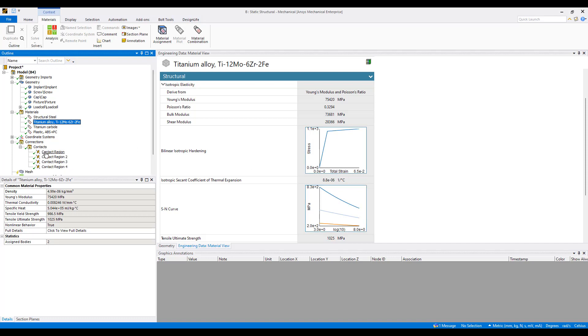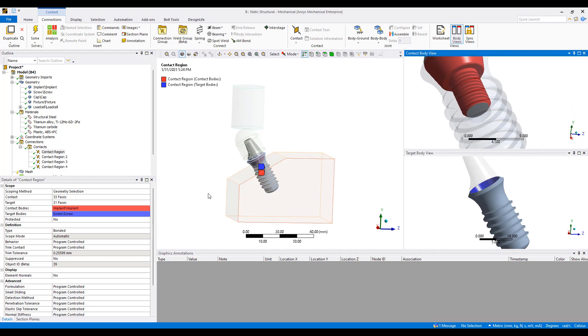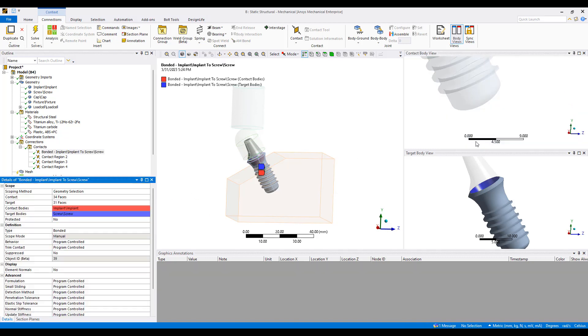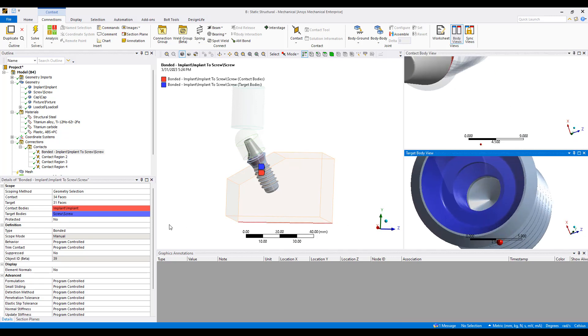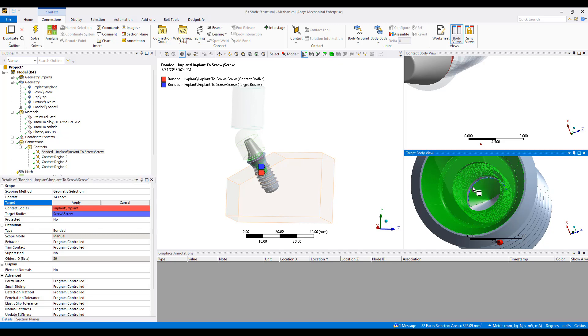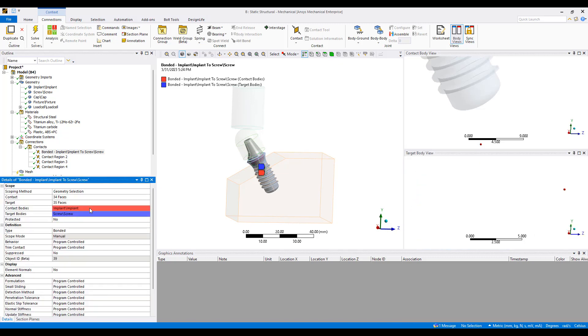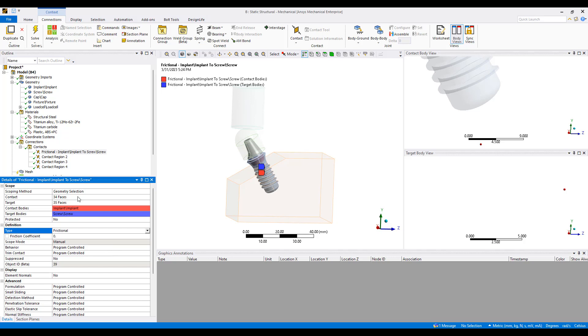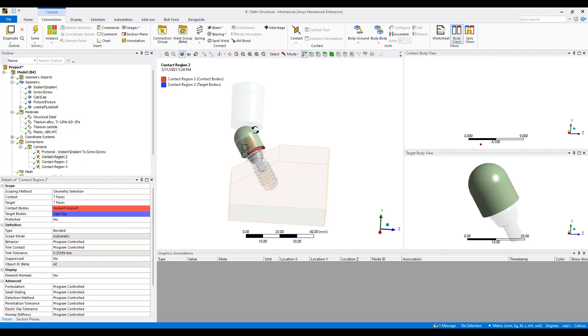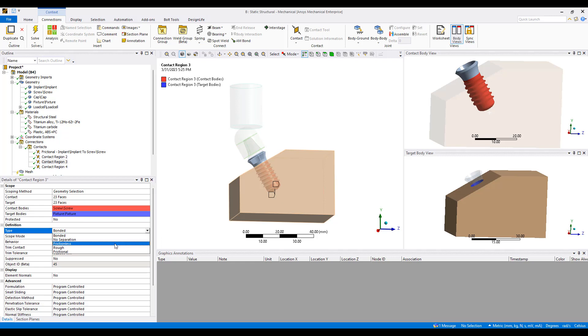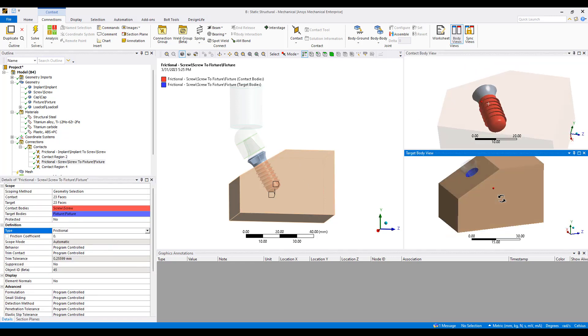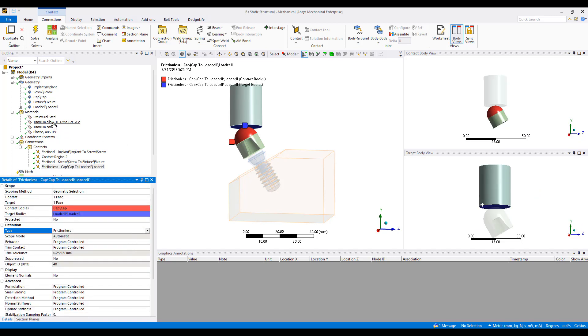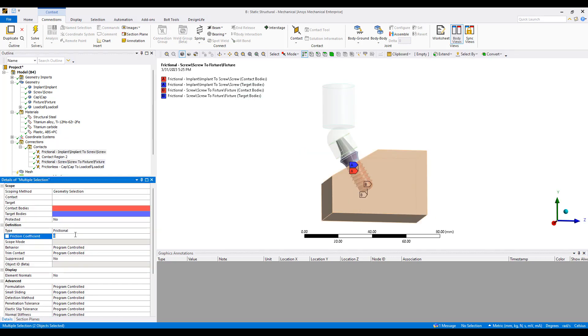Next we want to set up the connections. You can see that many parts here are screwed in. We want to ensure that the surfaces are properly selected. I'm going to add a couple more surfaces and we'll change the behavior from bonded to frictional. Similarly with this one, this is probably glued together the cap to the implant. This one is also screwed in so we'll change that to a frictional contact. And finally this one from the top to bottom will make this a frictionless contact.